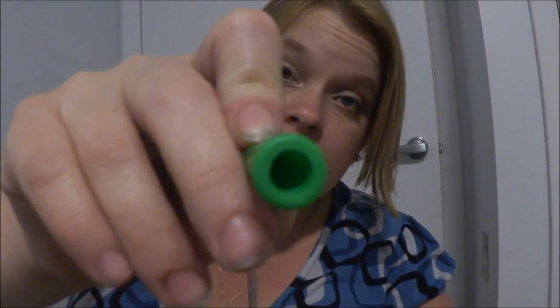Here it is — fully on, and it really is tight. I'm going to take it out here. Inside there are like grooves, and I'm sure it's probably this way on most catheters. The catheter company probably knew that these extenders existed and never mentioned it when I was ordering my catheters, so for whatever reason I have been waiting for years to find these things.